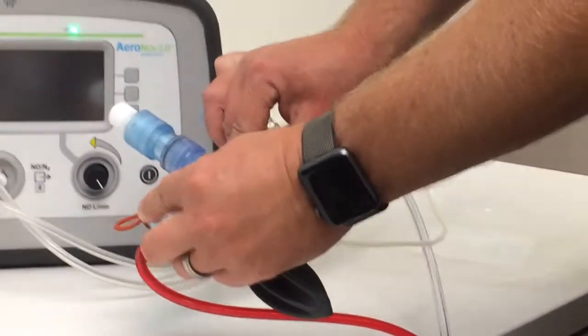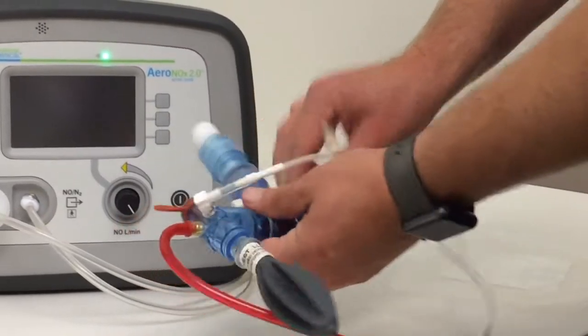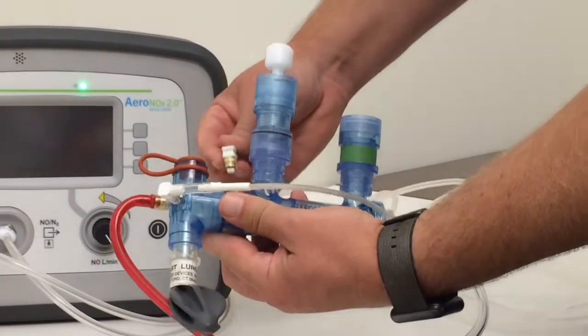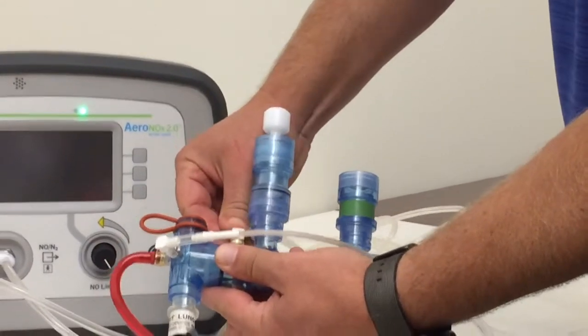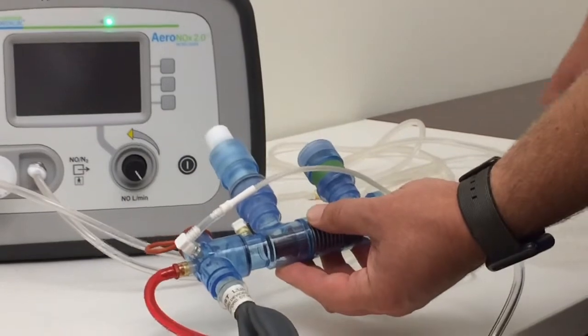We'll hook that up to the sample port, which is close to the patient. Here's our patient. And then the delivery port is just a little bit further back, right here. And that's what the finished product is going to look like when you have the circuit hooked up.